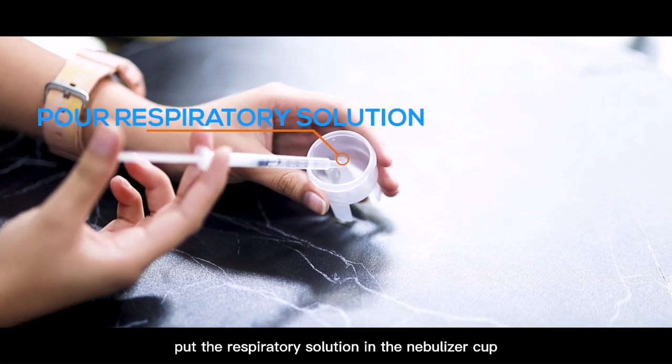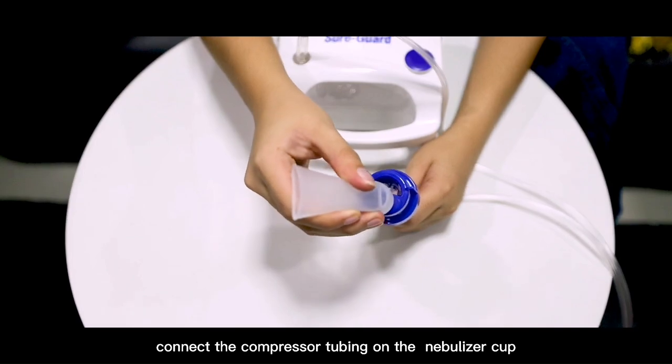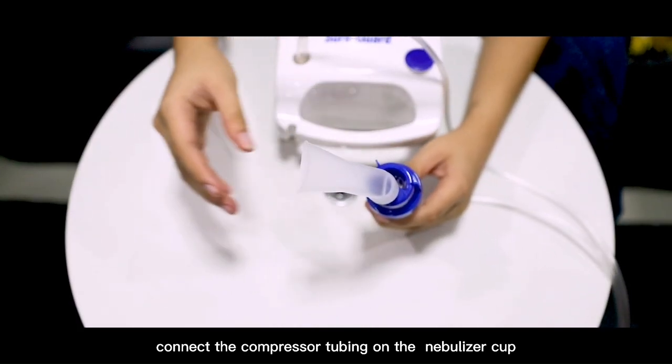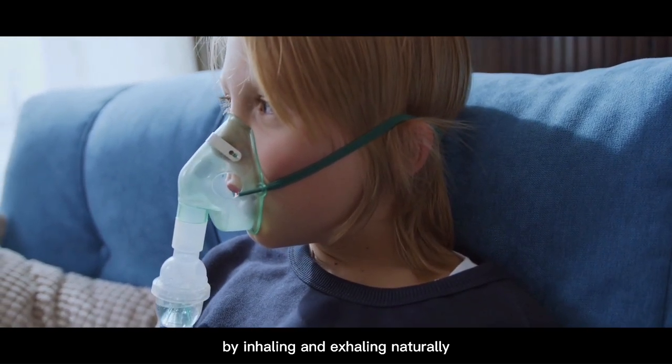Put the respiratory solution in the nebulizer cup. Connect the compressor tubing on the nebulizer cup. Begin the treatment by inhaling and exhaling naturally.